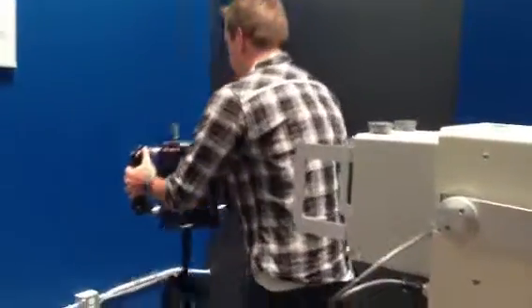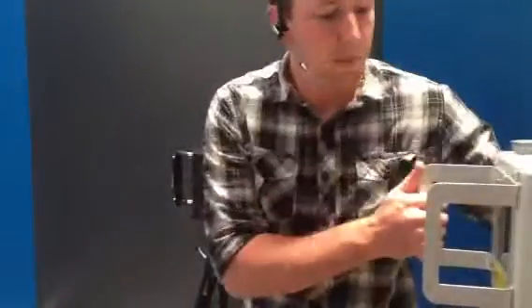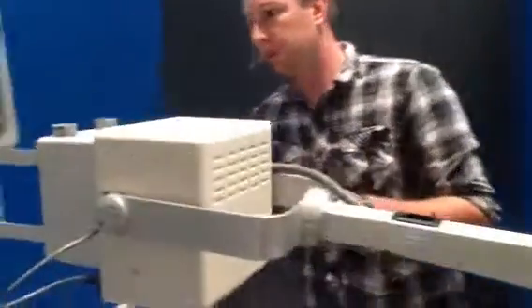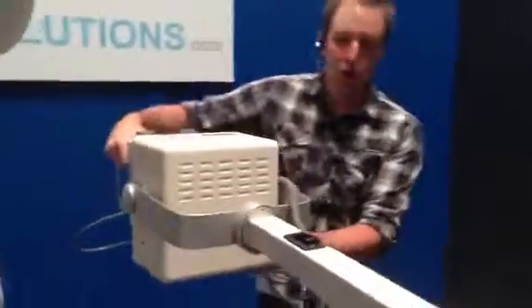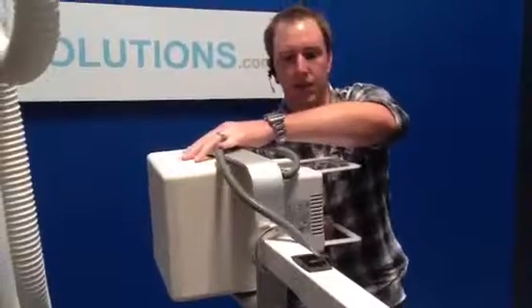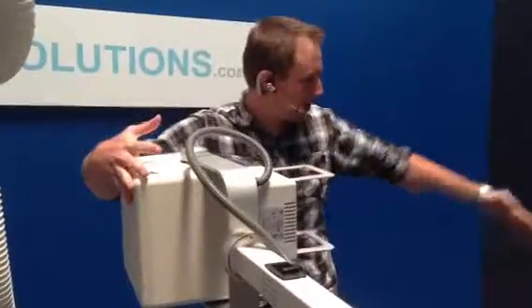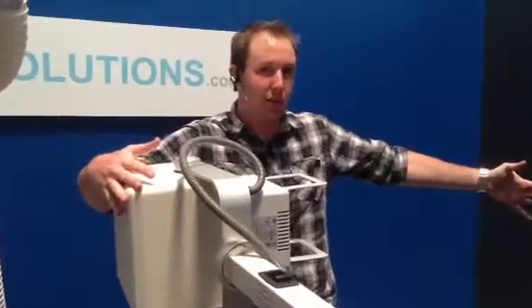what we can do is move our panel receptor, bring our SR-130 over, and then we're just going to rotate the collimator and the tube by turning it down and then sideways. This way, if this was the side of the wall, we're going to actually be able to get that 72 inches that we need for those chest shots.